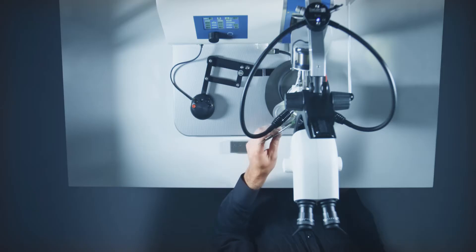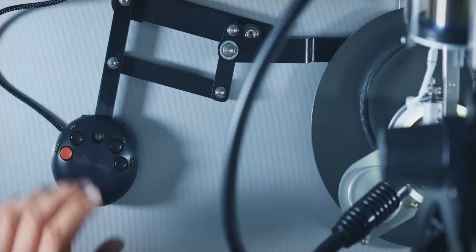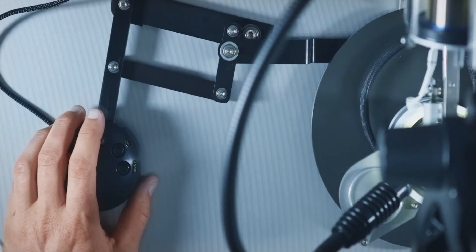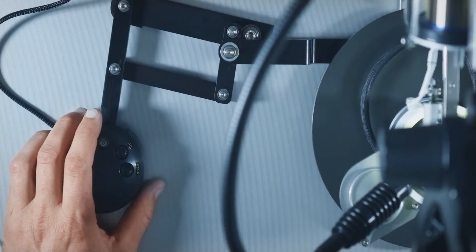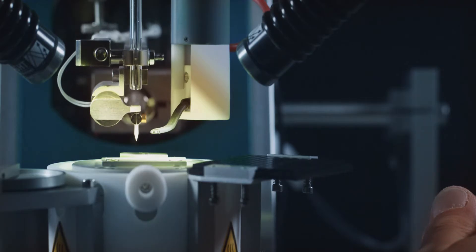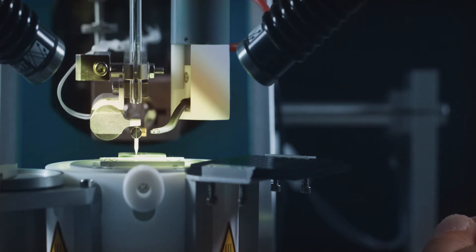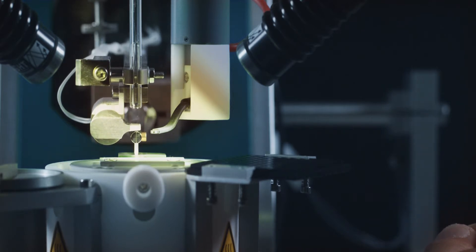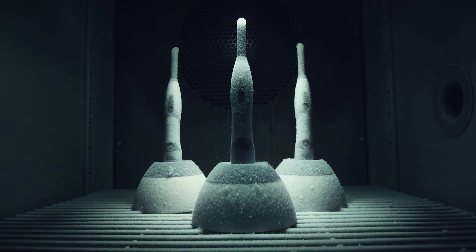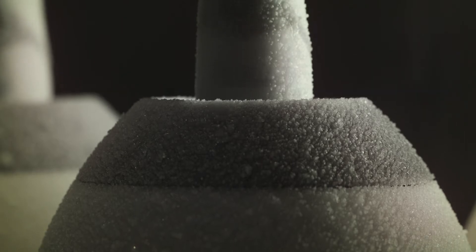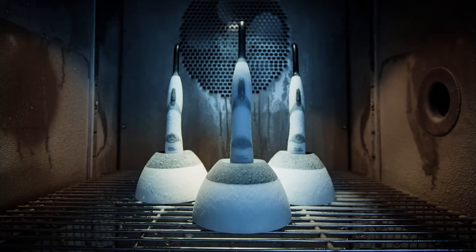Decades of experience and know-how are at the core of every blue phase. Using simulation procedures, all our newly developed curing lights undergo stringent robustness testing.